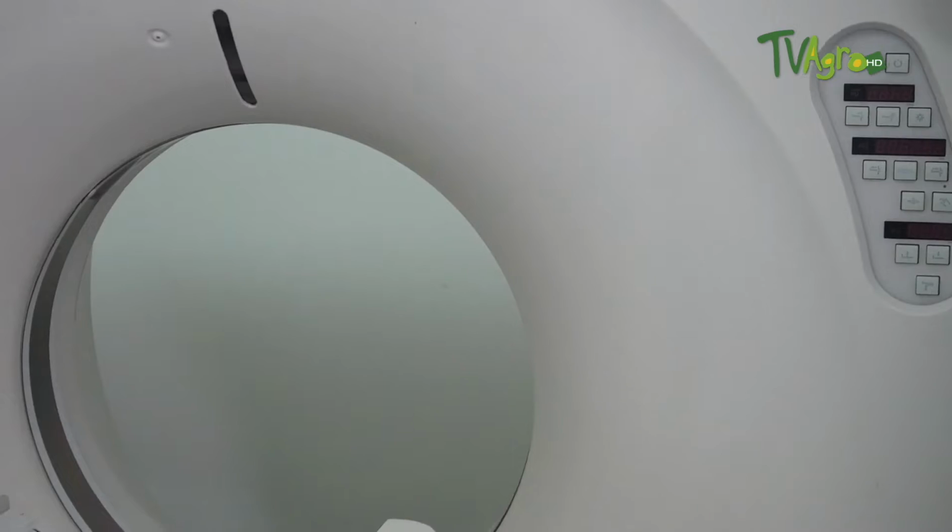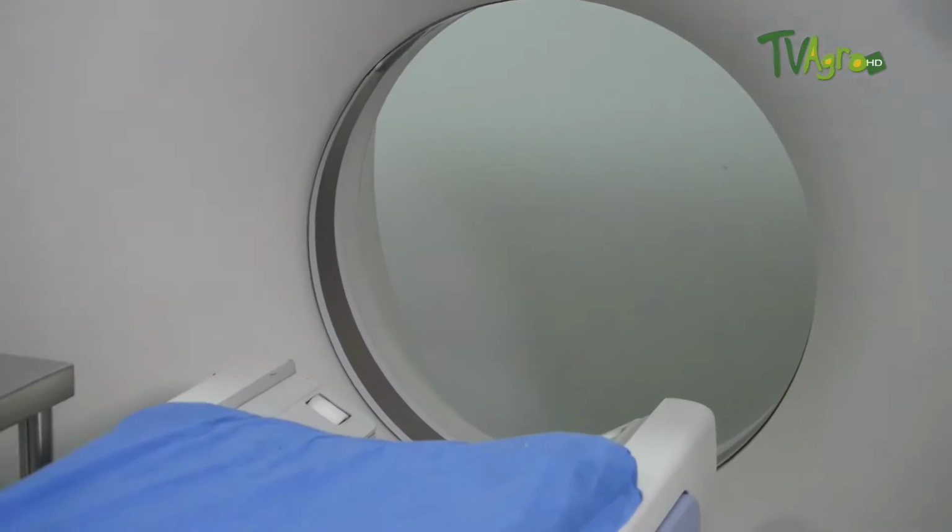We also know how to use it in these cases, and we must take into account that tomographs versus resonators have a limitation. We can use it very well in cases such as bone tissue, we are talking about bones and neoplasms, tumors, but it is very limited in other studies such as the nervous system. Our studies are mainly directed in a method where X-rays are used to generate specific images, and as such you can define what alterations and pathologies the patient has.